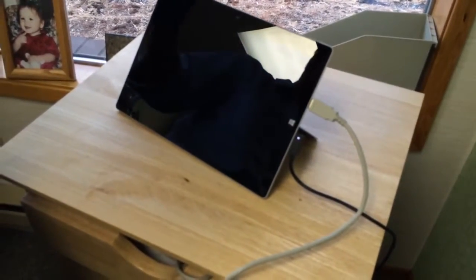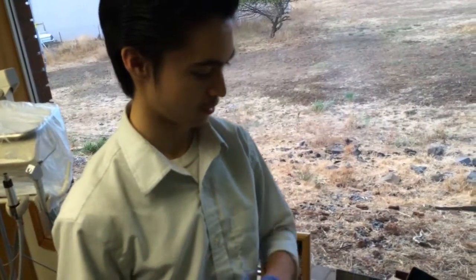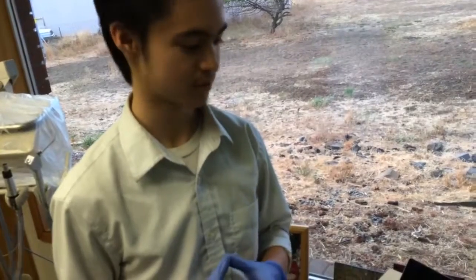You'll power it off just like that. And the next morning, that's really all there is to it. It's not much more complicated. Just make sure at the end of the day it gets plugged in. Otherwise, you won't have your computer in the morning. So it's really that simple, guys. You can't make it much more complicated.